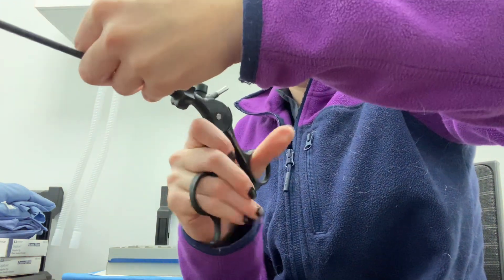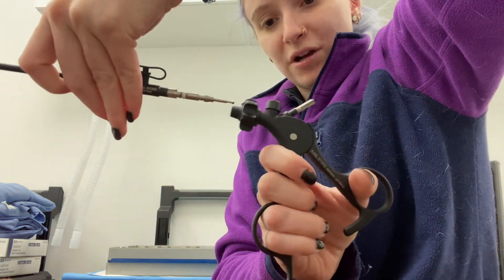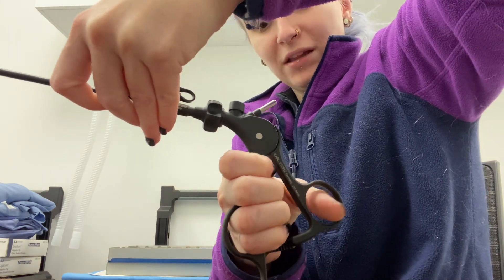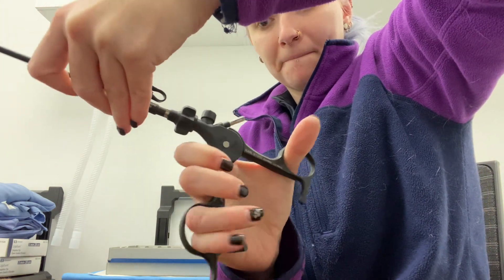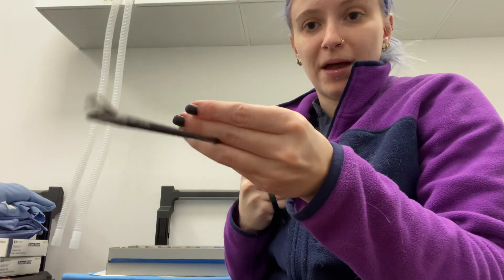It's not forcing it — it's not a lot of pressure. They should come apart and click together very easily. You want it partially open, stick it in, you'll feel it kind of push against you, grasp, and now your Babcock works.